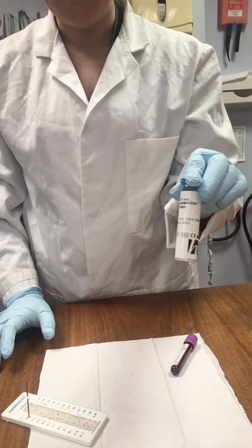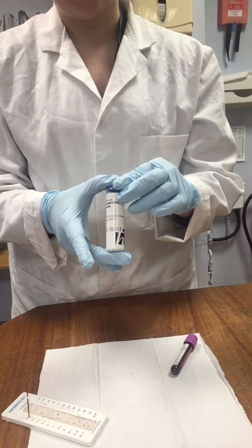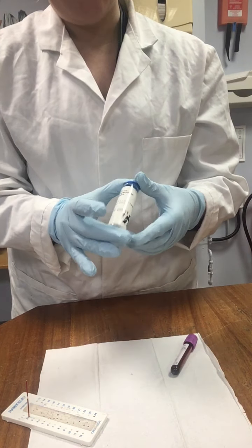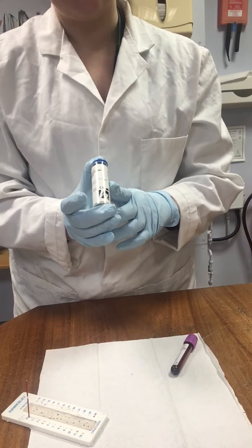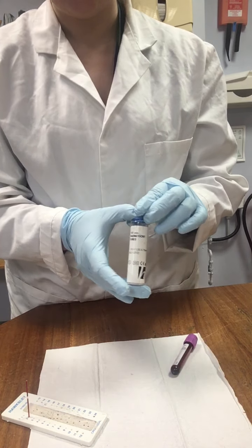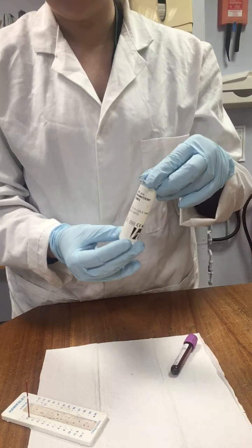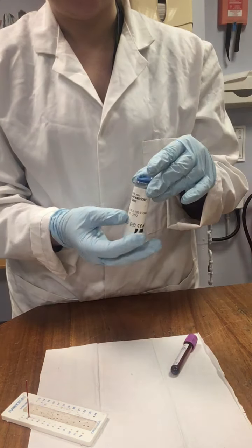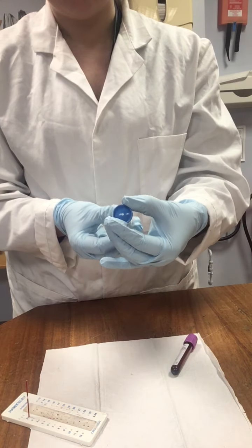This time we're going to use our clear or non-coagulated hematocrits. These are completely neutral. They don't have any anticoagulant with them. And again, we're using the blue lid.